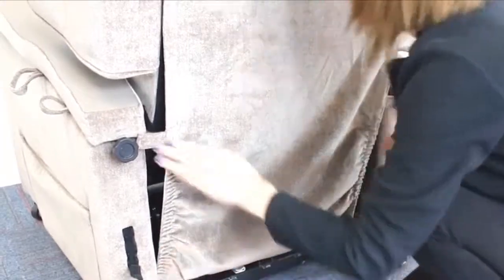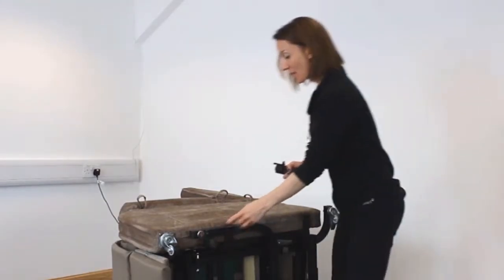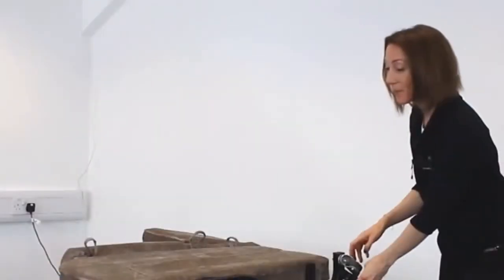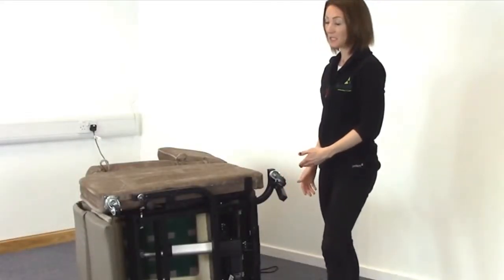To adjust the seat height by either one inch or two inches, you would flip the chair on its side and insert the height adjustment kit — this piece is for the front and this is for the back of the chair to increase the height. To adjust the height, we insert this piece and screw it into place, and this one goes in over there. When you raise the chair you do take the chair off the casters, but it raises the height of the chair according to the person's needs.